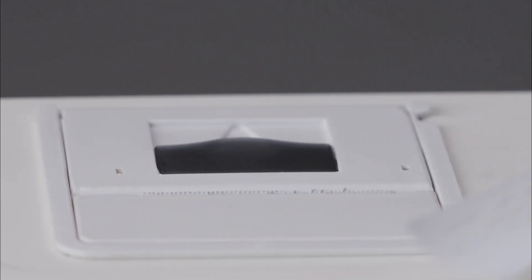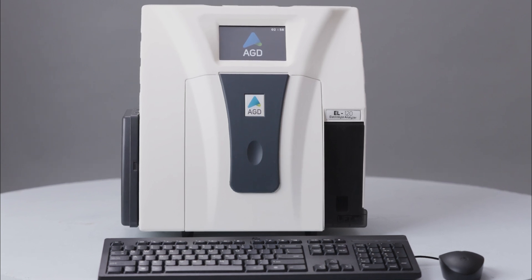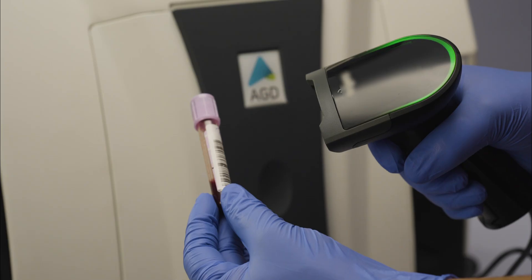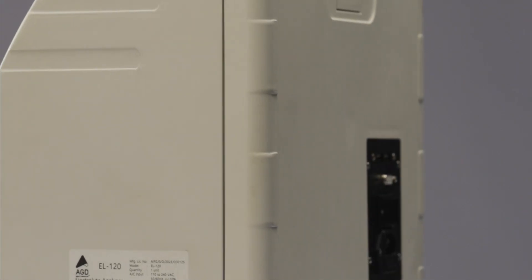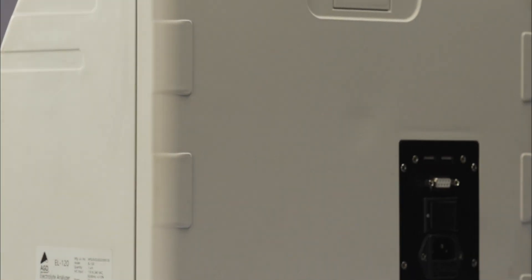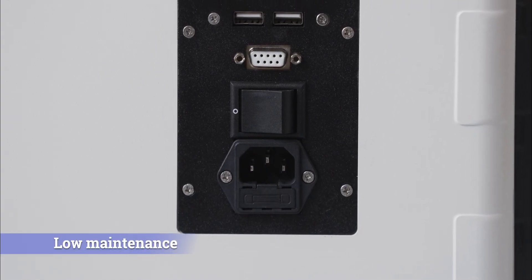You have the flexibility to enhance your user experience by easily connecting external devices such as a mouse, keyboard, and barcode scanner to our system. In addition, our system seamlessly integrates with LAS connections, allowing for smooth and efficient data transfer and communication between our analyzer and your existing laboratory workflow.